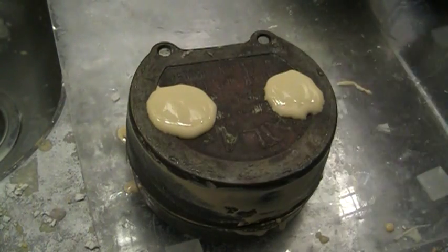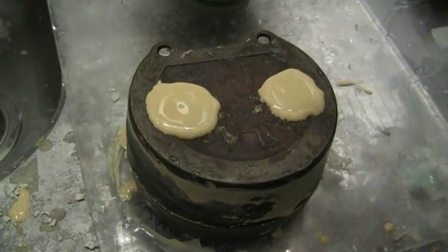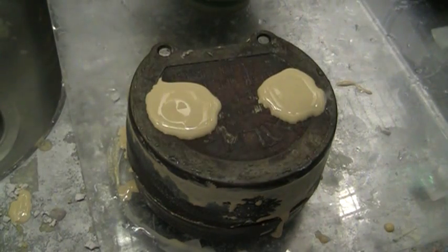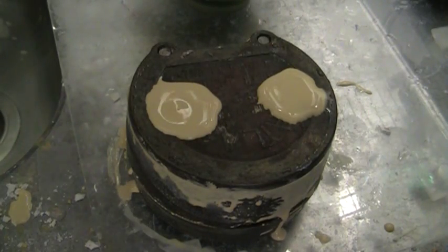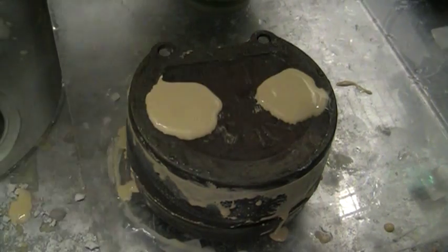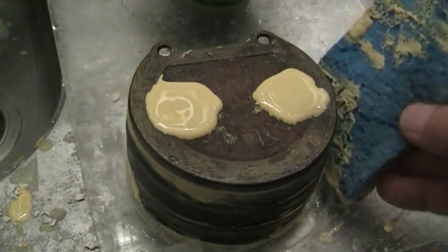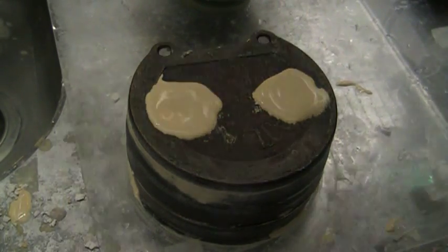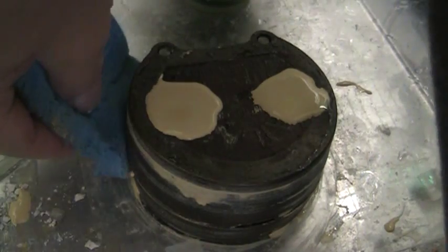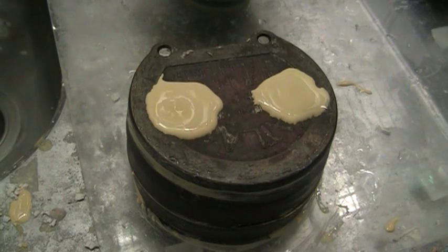I usually take a wet sponge and just wipe it off. Rapid Flask from Whip Mix — another time saver and another way to make a quality prosthetic with very little extra cost, about the same cost as the stones I had been using previously, and yet I'm getting a much nicer, easier result. Don't have to vibrate the living crap out of everything. Okay, talk to you later — just another matrix moment.